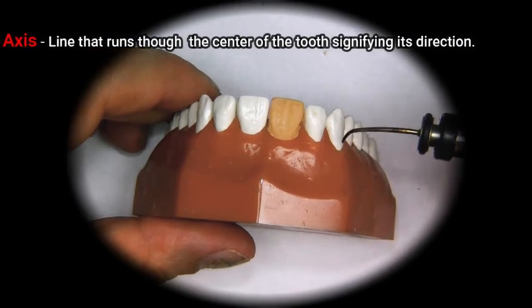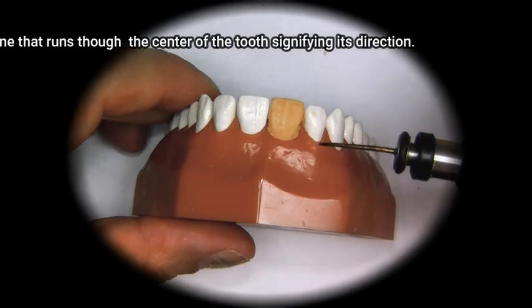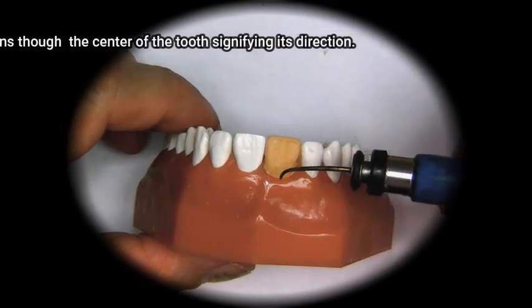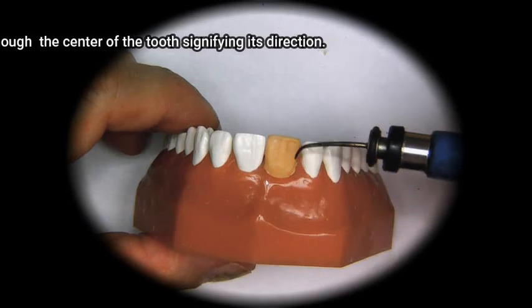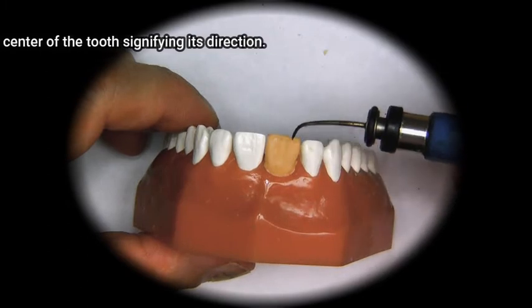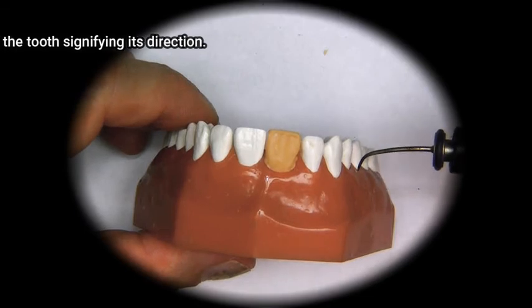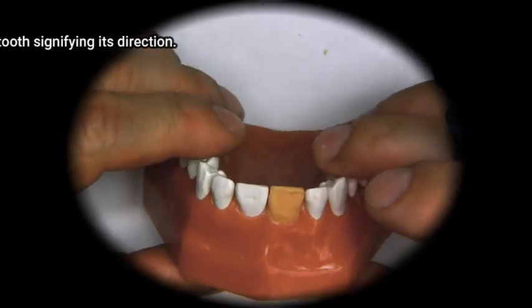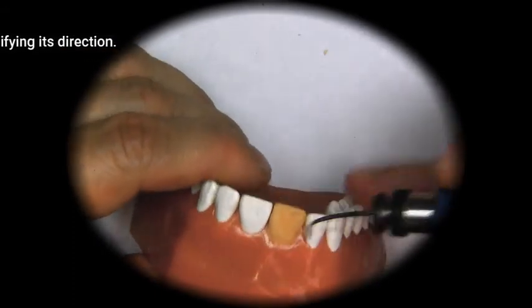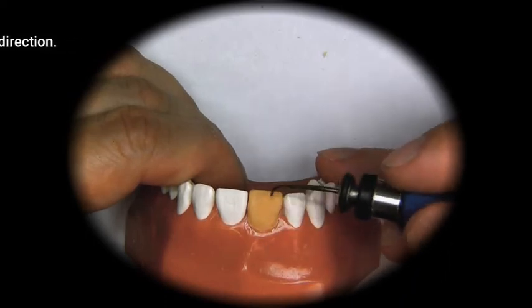Now we have to consider the anterior teeth as a whole to make sure that if all the teeth are diverging, the tooth that we're replacing is also diverging, because the eye will pick up the fact that this tooth is pointing in a different direction than all the other teeth. So the next step we're going to do is see if we could correct the long axis of this tooth.